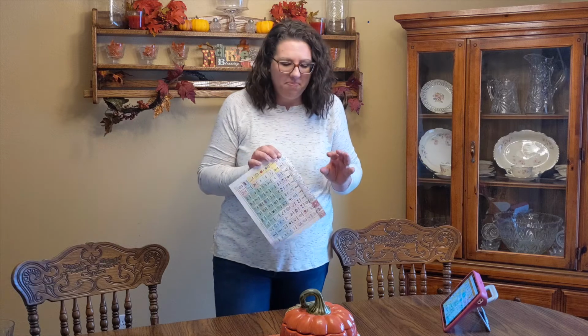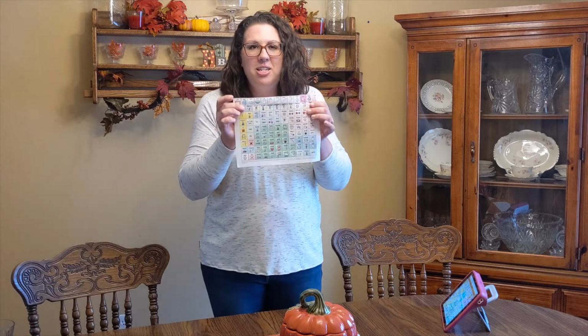But sometimes that device will come home and it really needs to be put on the charger, or it's not working. Maybe you already have a full table the way it is, and you don't want it to be on the table, but you still want to provide communication to your child or your AAC user, right? So that's why a low-tech menu communication board is awesome.